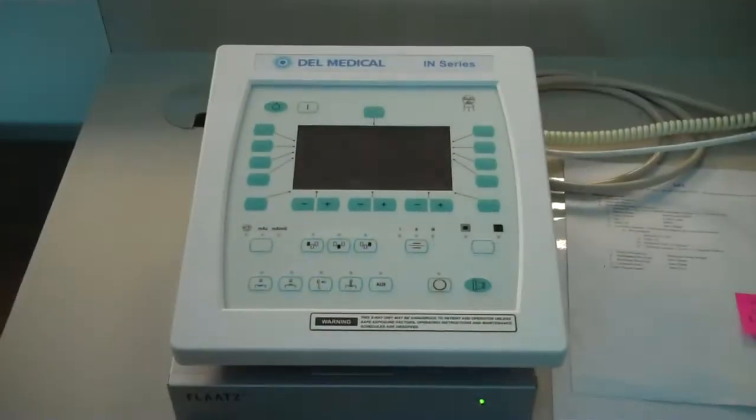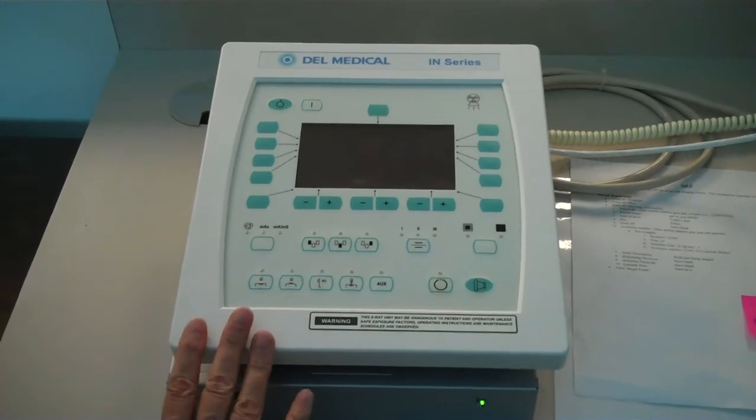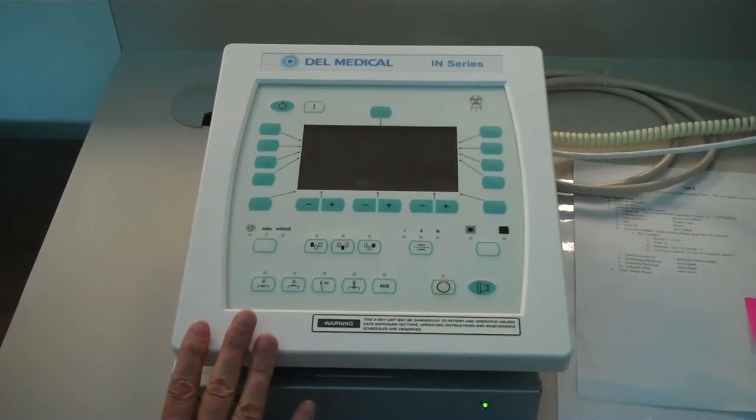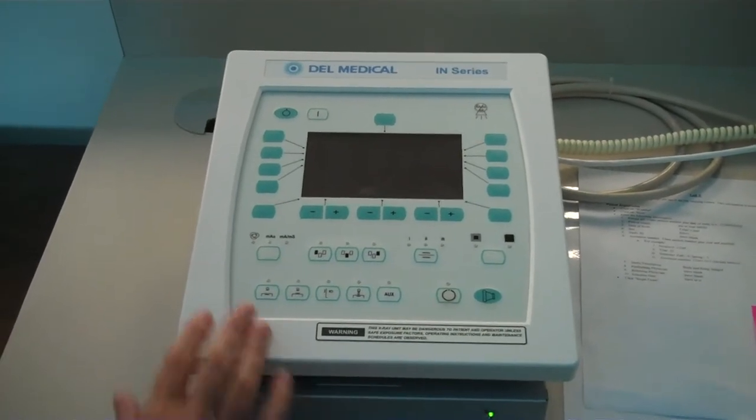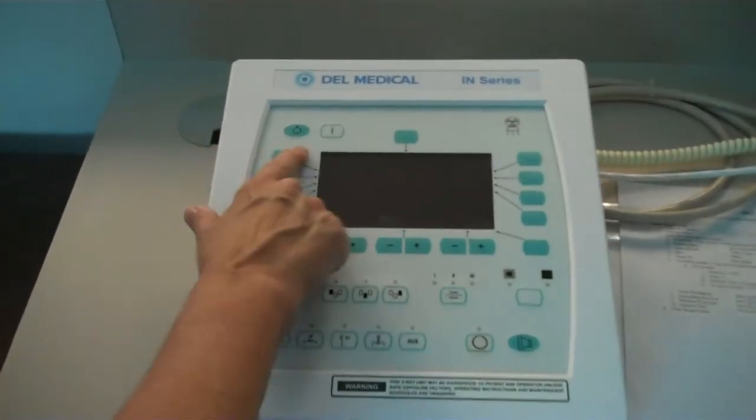In Lab E, the control panel outside the room is how you turn the equipment on.